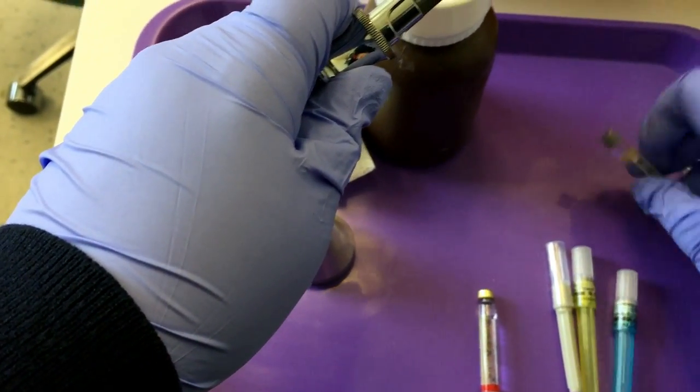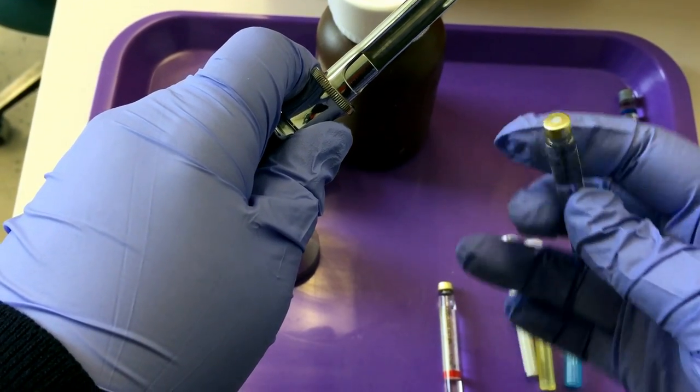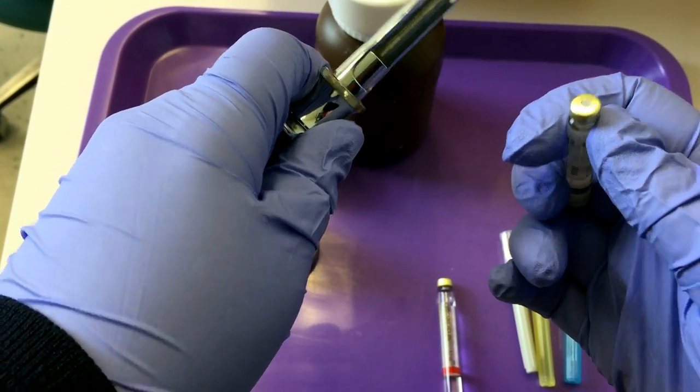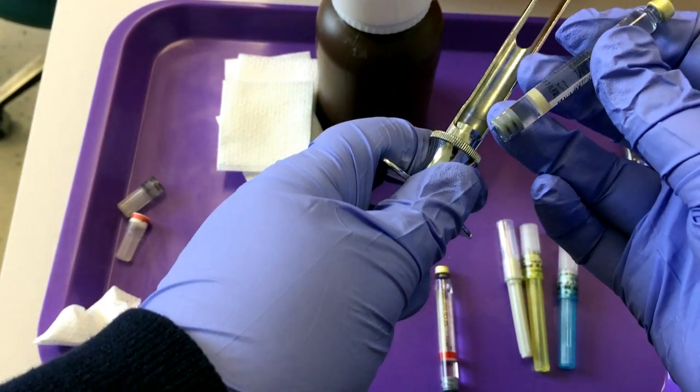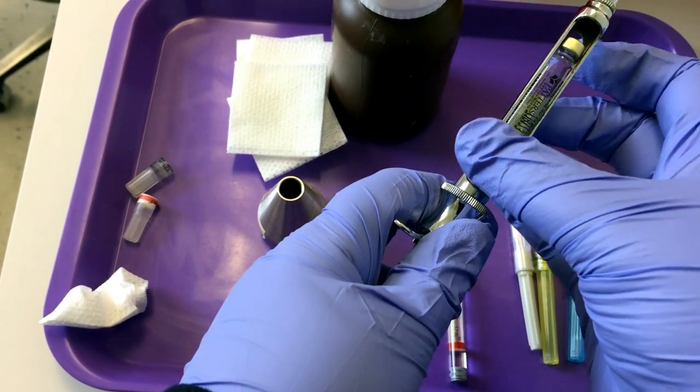You could then grab another anesthetic, disinfect the rubber diaphragm, and insert it just as you did the original, rubber stopper down.